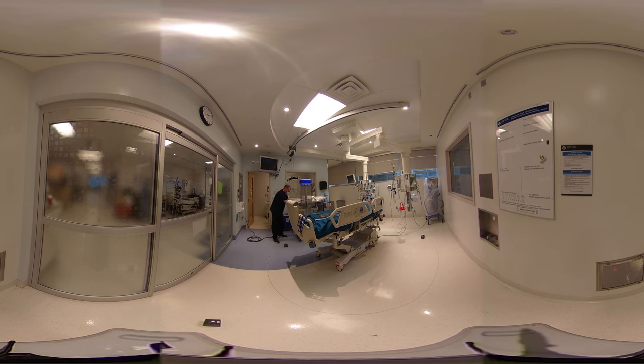We're moving the machine closer to the next sensor. This part here has already been hit by ultraviolet light, so now we have to move some equipment around so the sides that weren't exposed will get a dose. Since the machine will be going right around the room, try to keep that in mind when moving your equipment. I can't stress enough — wear gloves, wash your hands. The equipment here has already been hit by a dose, so we're going to turn it around to expose the back side.